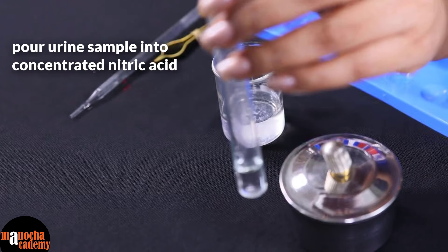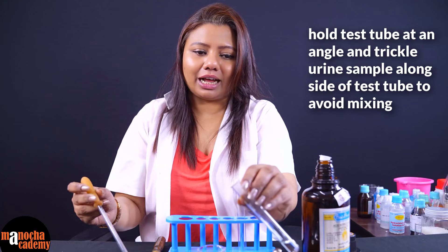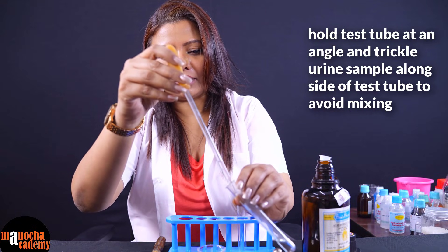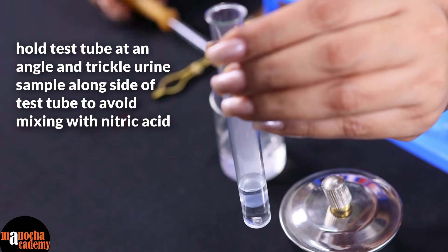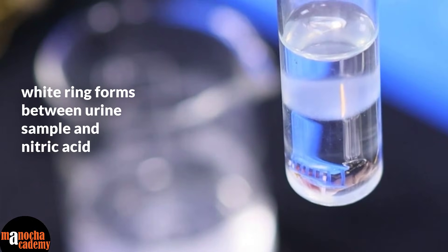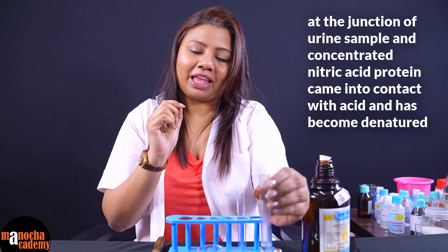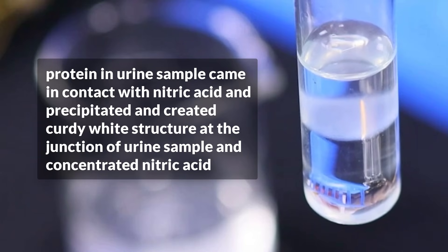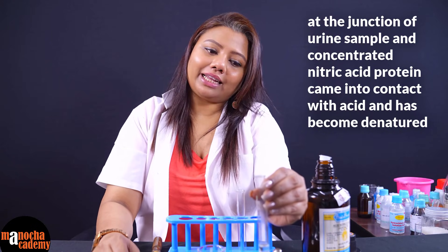I have taken the concentrated nitric acid in the test tube. Now I am going to pour the urine sample into this test tube, but not in a way that it mixes with the nitric acid — I will just slant it and trickle the urine sample along the edge. You can see a white ring has formed at the junction between the concentrated nitric acid and the urine sample, because at that junction the protein has come in contact with the nitric acid and been denatured, forming a curdy or milky white precipitate ring. This gives a positive Heller's test, confirming that protein is present in the urine sample.